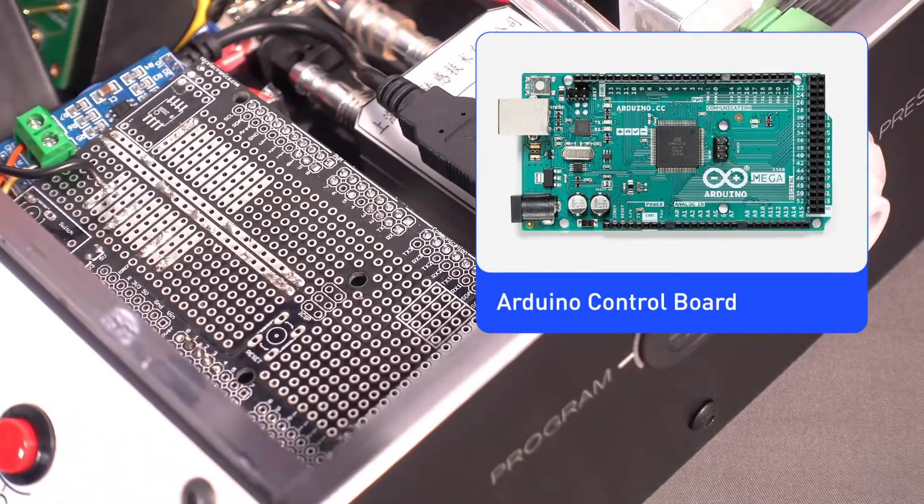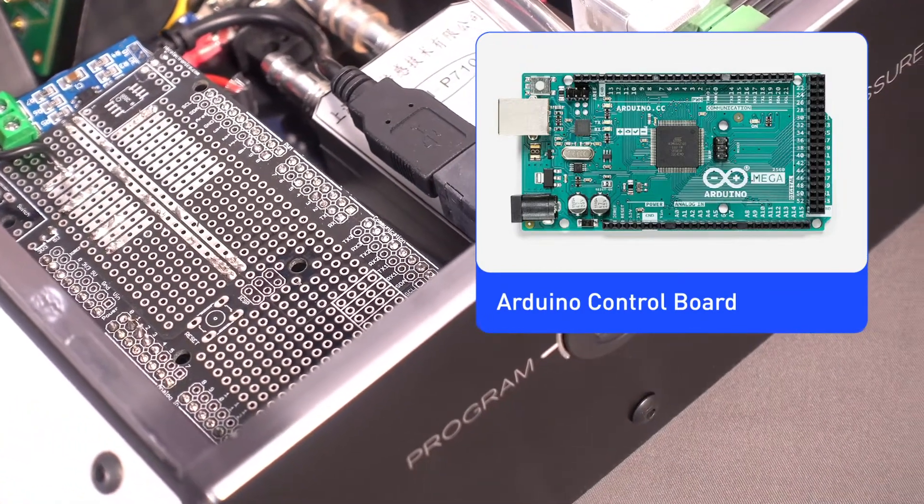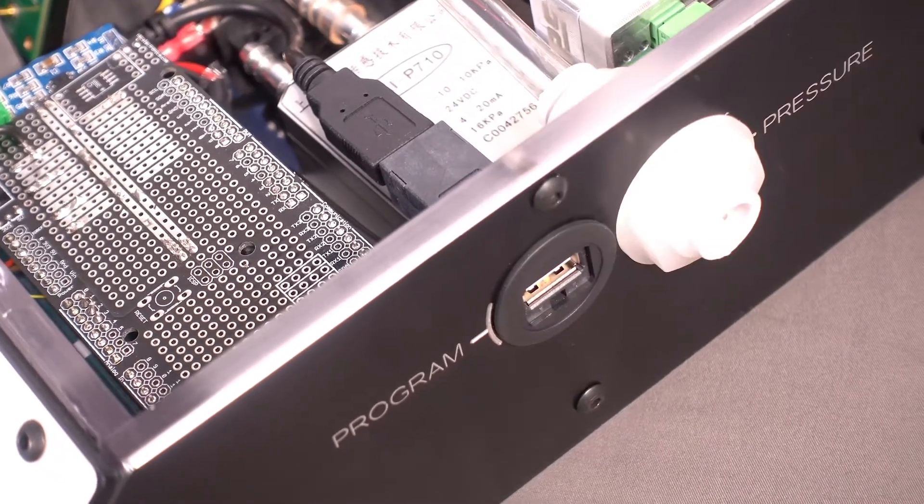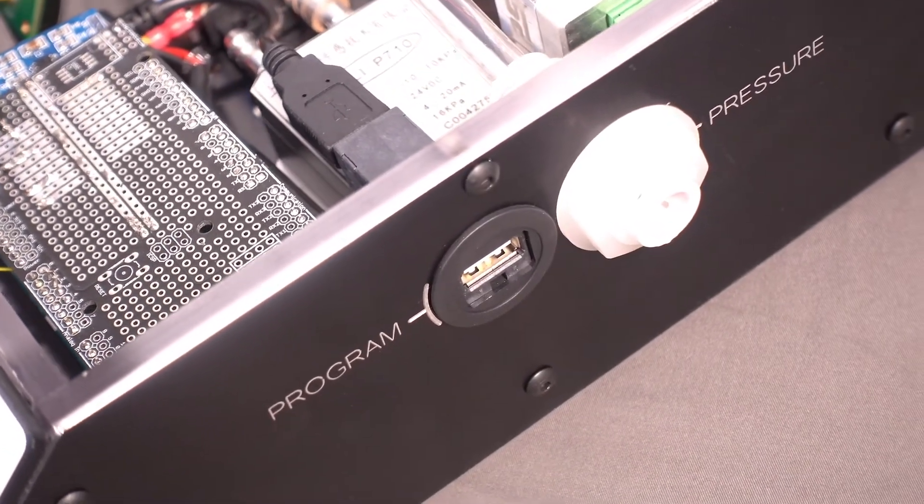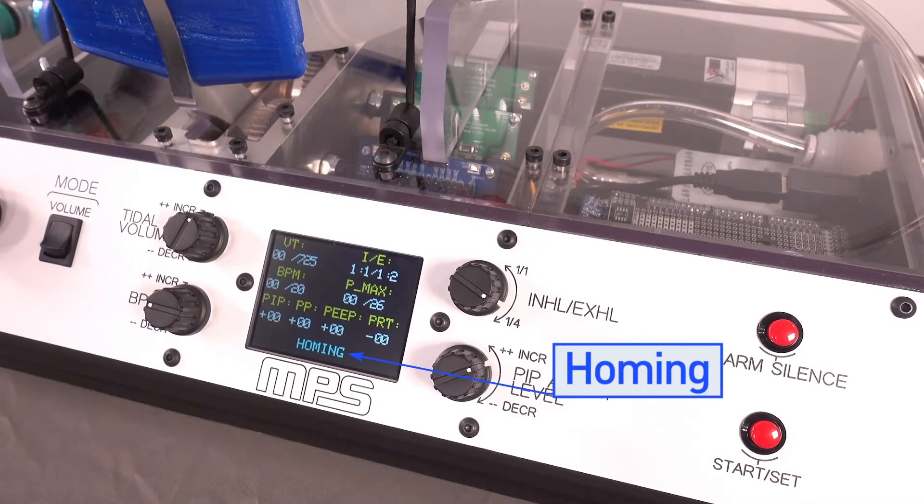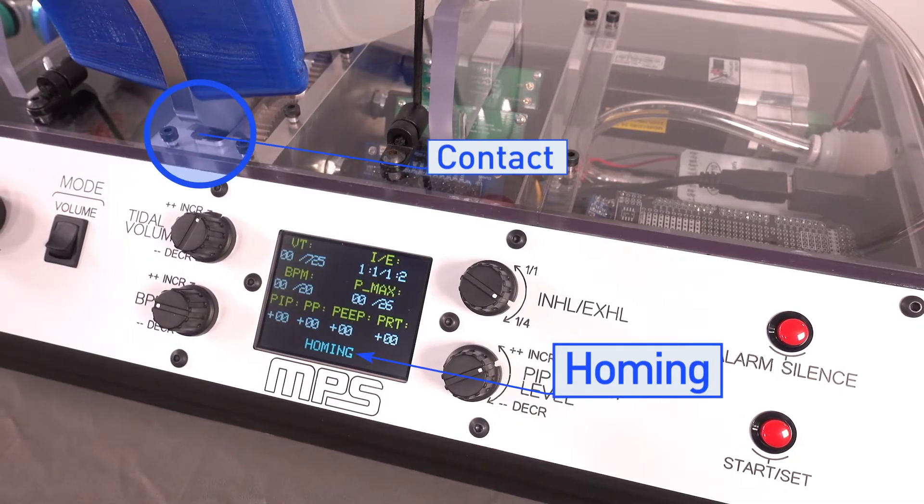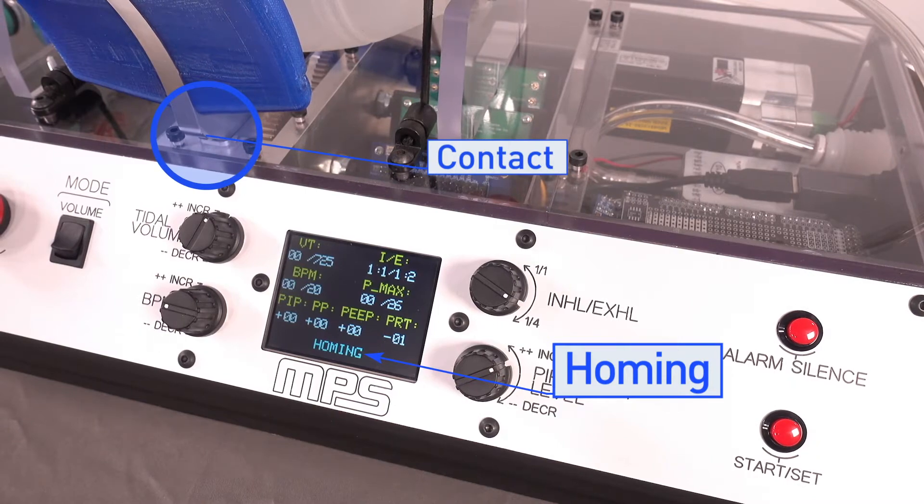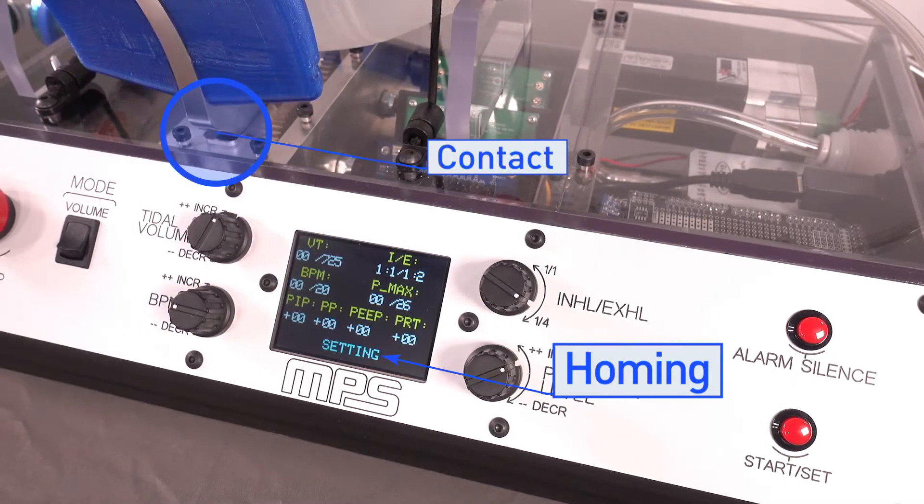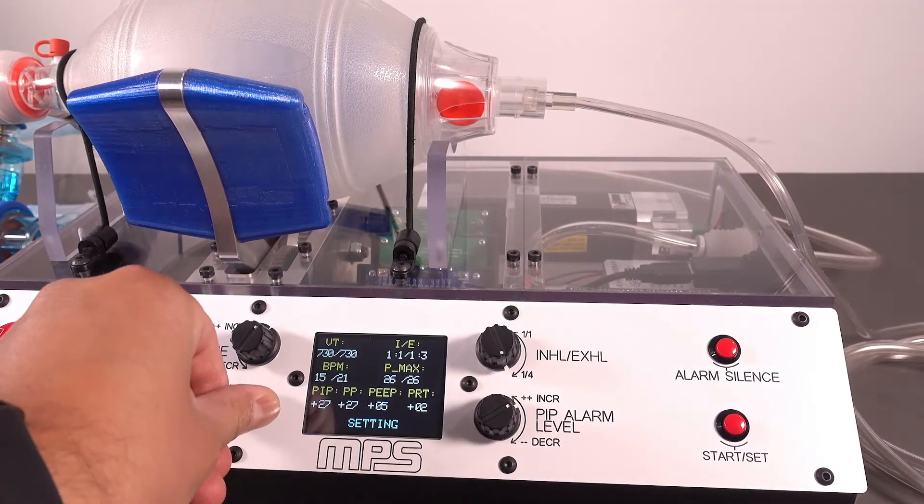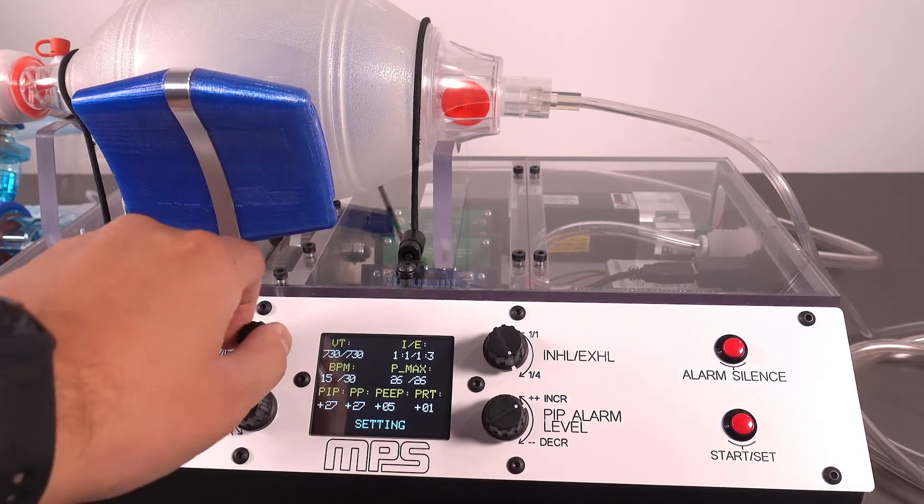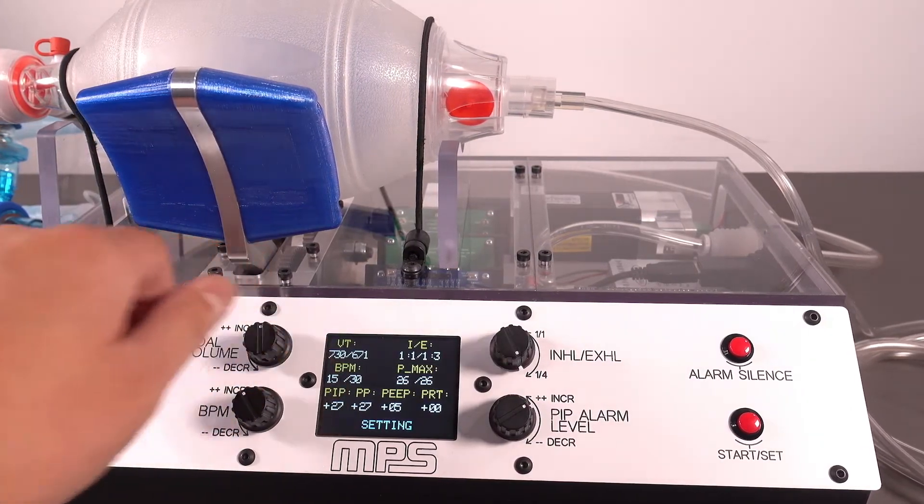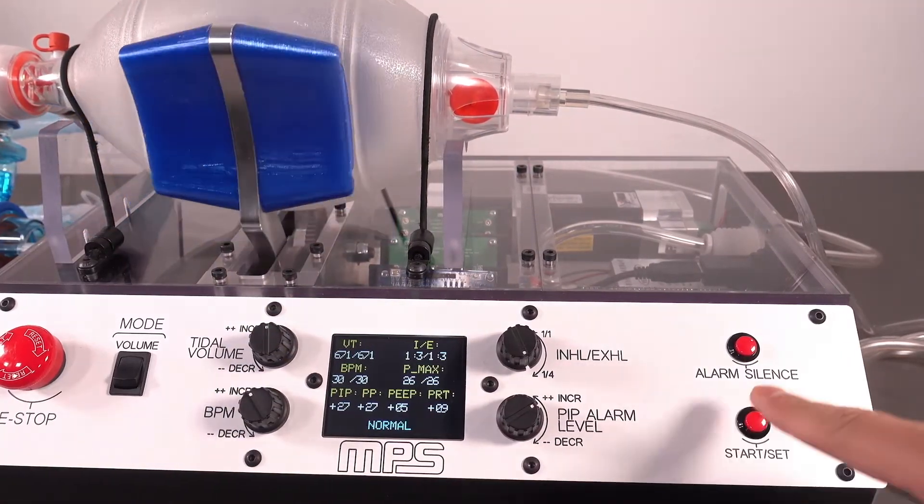Using this library, we are able to control all the motor functions necessary to operate the automated BVM. We are even able to implement a built-in startup homing routine by sensing motor current as the compression arms slowly approach and contact a physical hard stop. This allows a home position to be set without the need to integrate a separate mechanical switch. From there, we take the user inputs from the control panel to drive the appropriate motion and breathing profile.